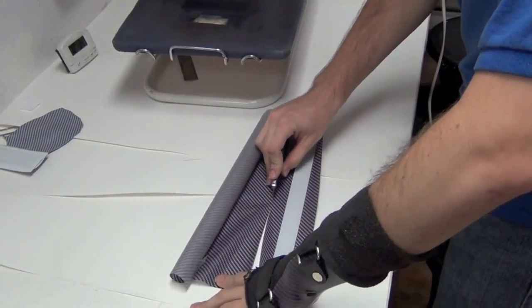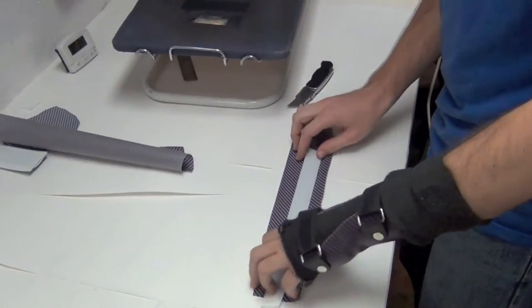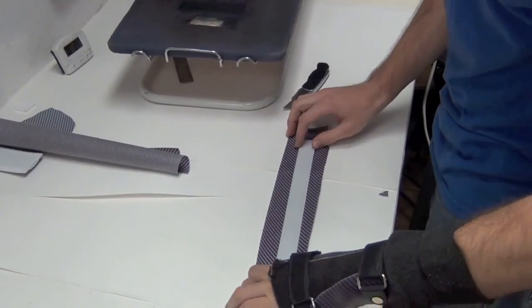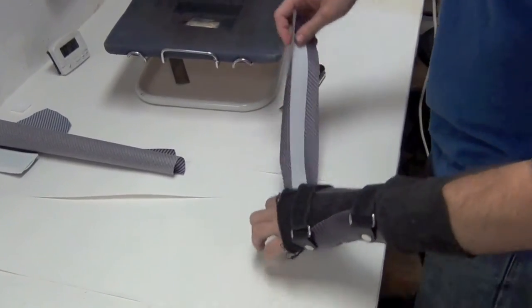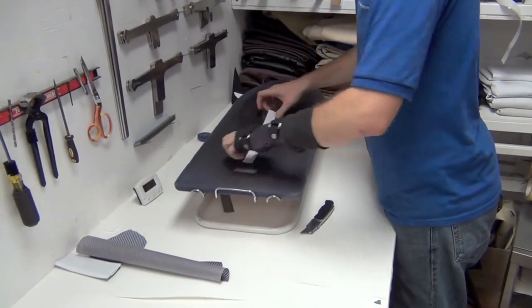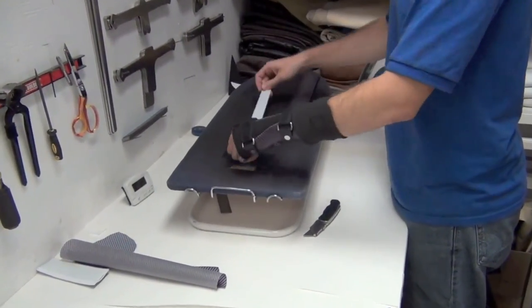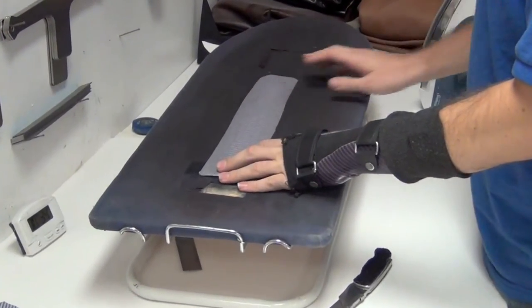Maybe two and a half to three times the width of your regular velcro, just to keep it in line. Make sure you're covered in case it does move. So stick it down to your adhesive hook, lay this down on top of it.